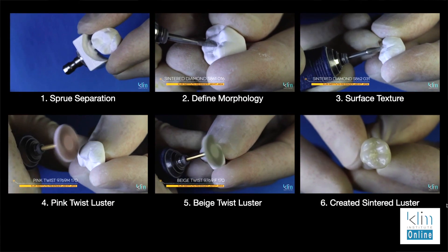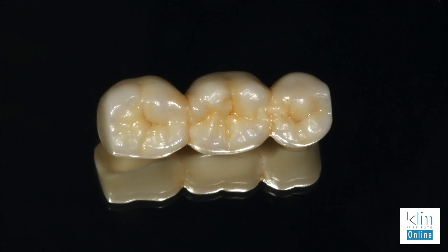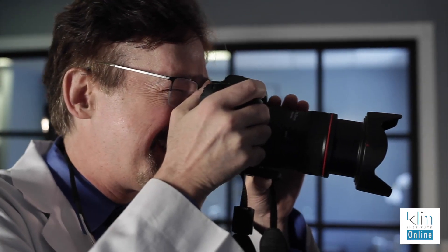I get a little passionate about this because I see it all the time. When I'm out lecturing, doctors say 'CEREC doesn't look good.' Well, it's how you manage the system that makes the difference. When you go into this system, you have to master the craft — and it's so easy to do. Get to training, get it done, understand materials, and you'll have a better professional life. I know I have. I've had a much better career because of CAD-CAM, and I've had it in my office for 15 years now. I enjoy the journey; I enjoy the craft of dentistry. When I create something that's a masterpiece and give it to that patient, I'm giving them my best — and that fulfillment has changed my professional self-esteem forever.